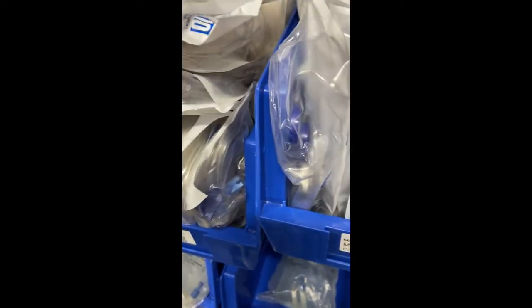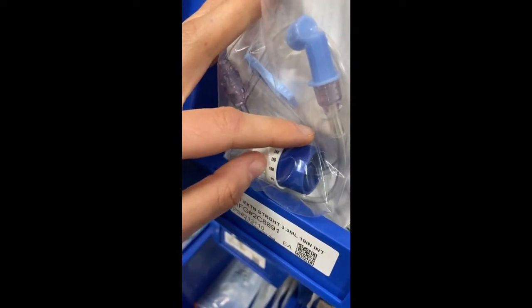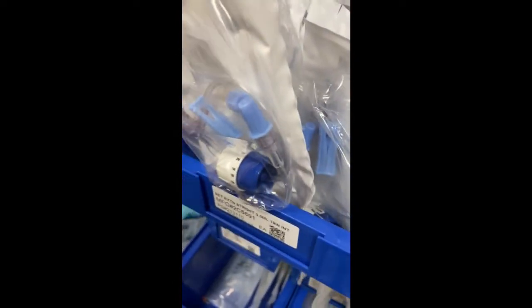And the way you would put it in is, here's your tubing. This would go right in. You take off the blue thing, and this connects to that. And then this goes to the patient's IV. And if you want, you could put on a valve to control the flow rate. So if you wanted to go to 175, etc., you would attach this to that part, this to here, and then that part would go to the IV.